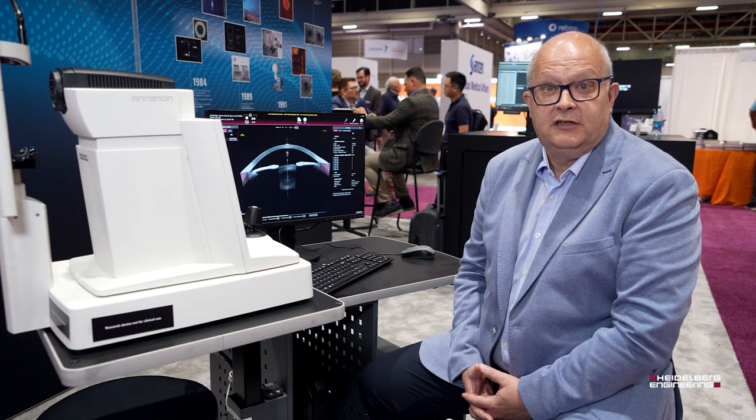Hello, my name is Steve Thompson. I'm clinical director for anterior segment in Heidelberg Engineering. I'd like to take a few moments just to talk about Anterion, a swept source OCT that has been optimized for the anterior segment.